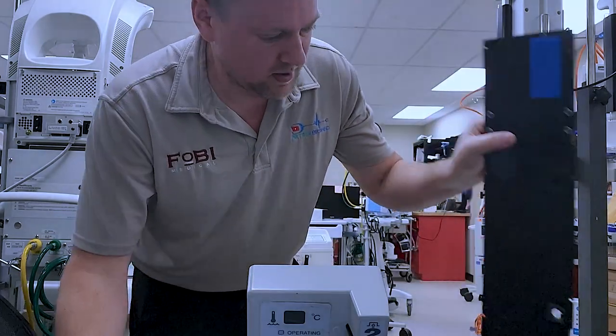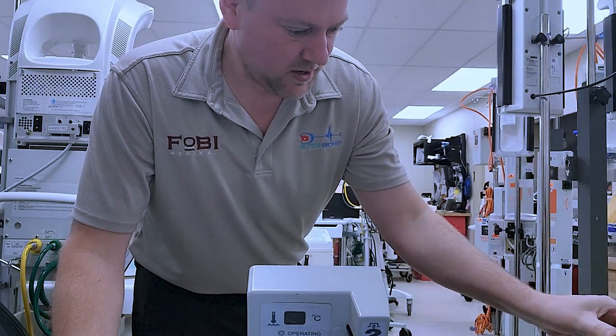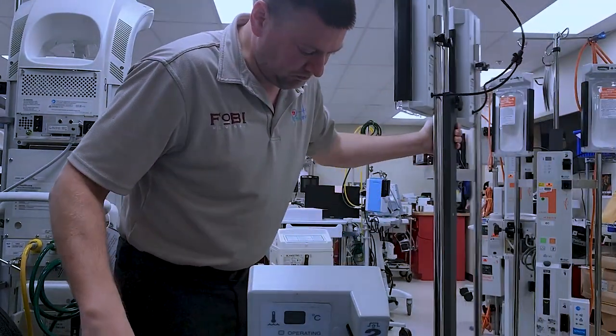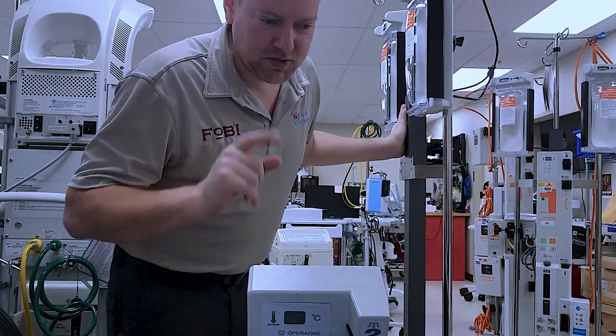Okay. I'm going to pull the panel off and set it over to the side. Bring my unit back over. And here's where the trick comes in.